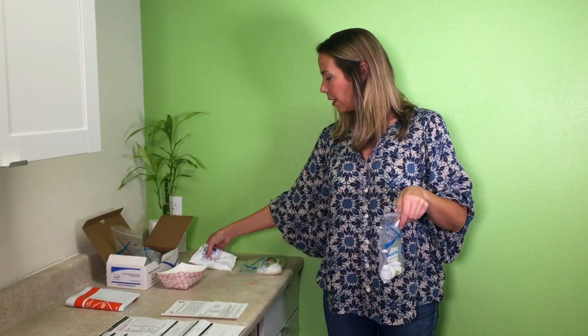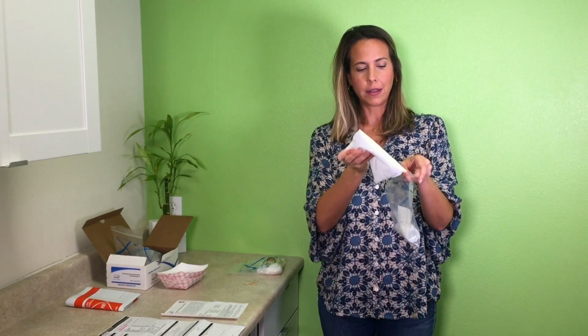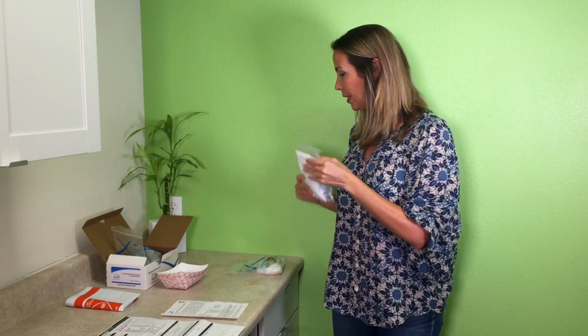Okay, on day 2, you also have a white capped vial. You're going to fill it up with stool just like you did the other vial, but this one is not shaken. And you're going to put the polar ice pack into the little pouch provided in the back of the Ziploc bag for this one. Okay, and then this one goes into the freezer. The white cap vial has to be frozen, okay? So this one's in the freezer.